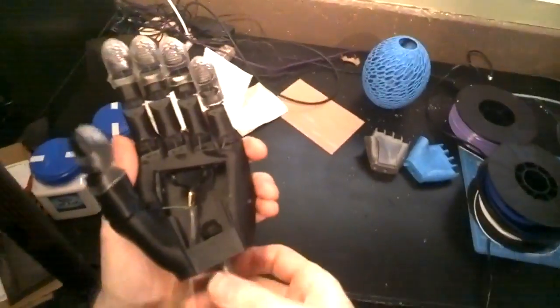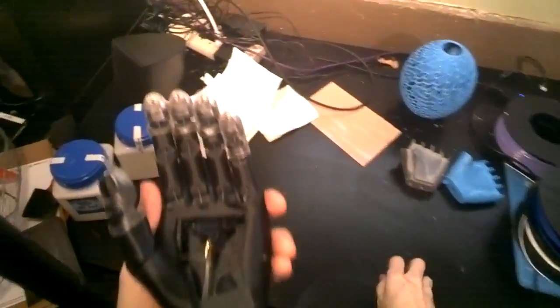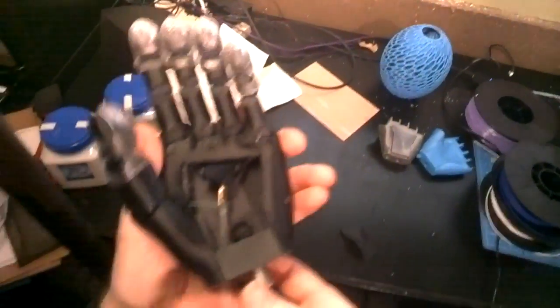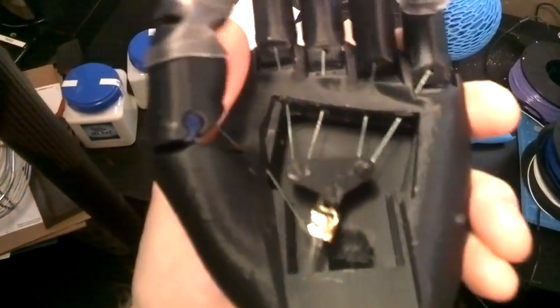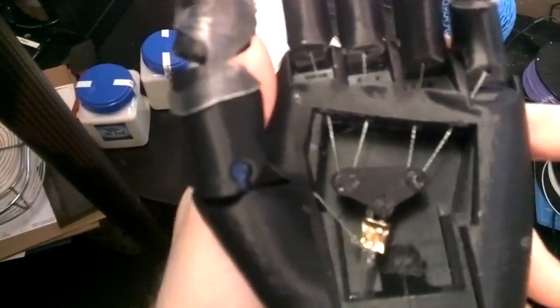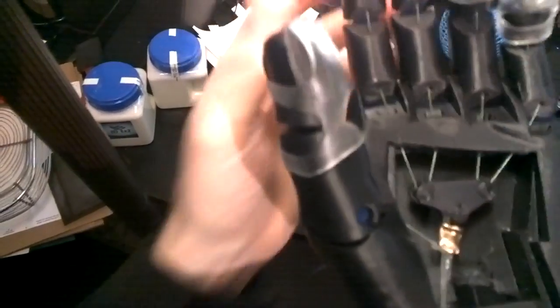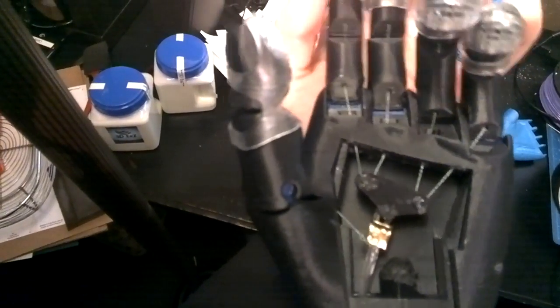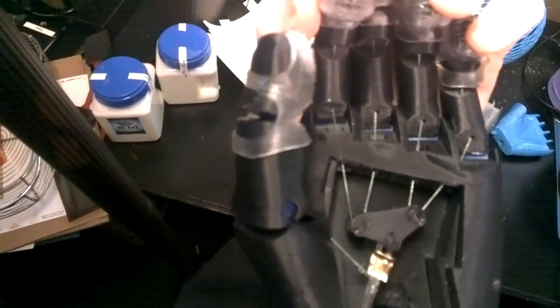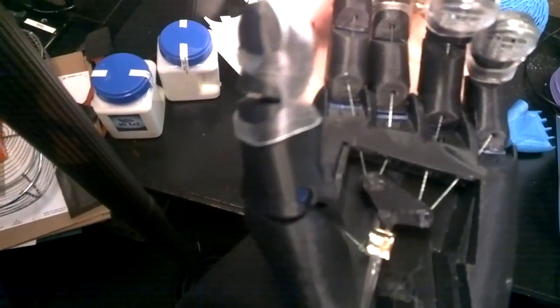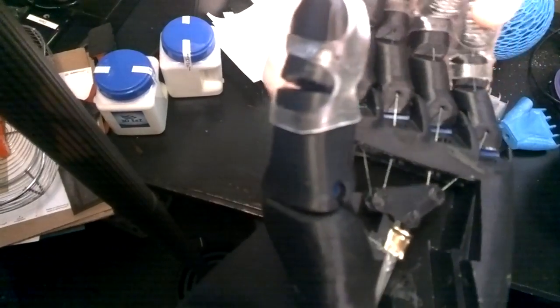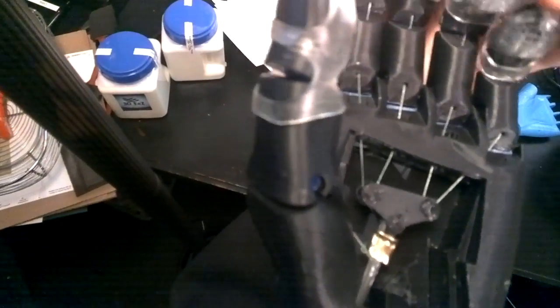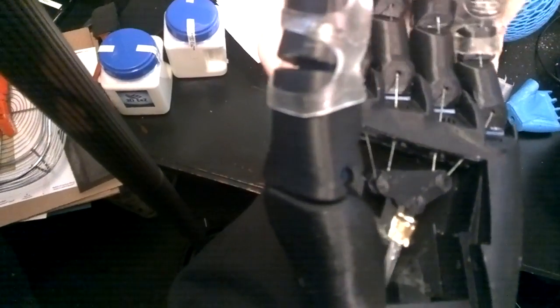And if I can hold this down, let's see, if I operate the different fingers here, you can see that Whipple Tree mechanism move from side to side to allow for a variable grasp.